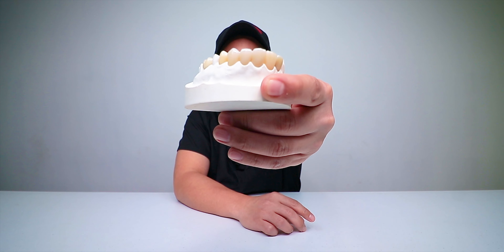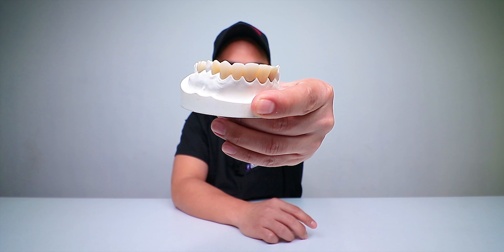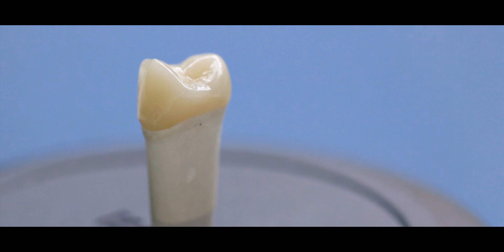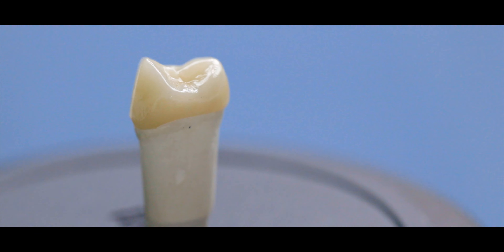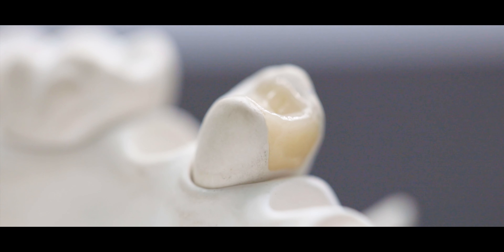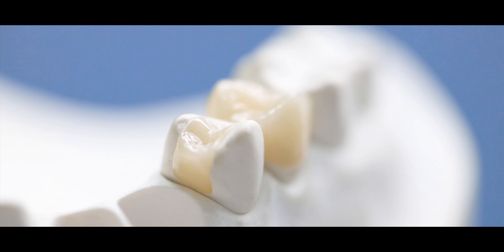It's right here. It has a posterior crown — an all-ceramic posterior crown. It also has an inlay, which I really like to show because it's easy to distinguish the size of an inlay versus a crown if you're able to actually show the patient this beforehand.